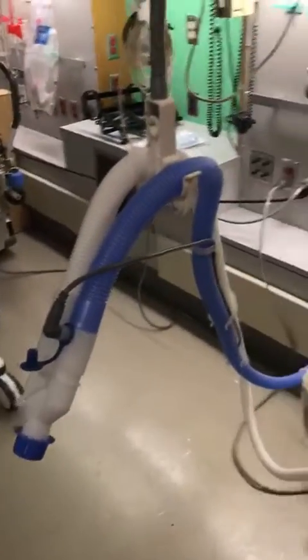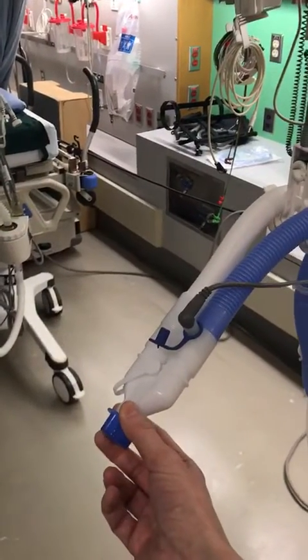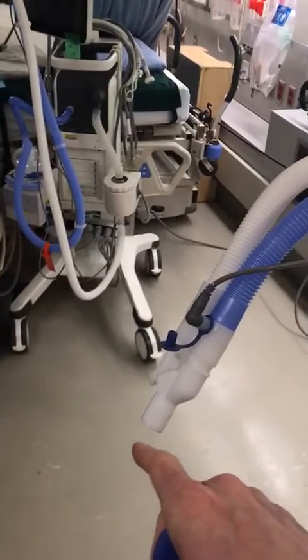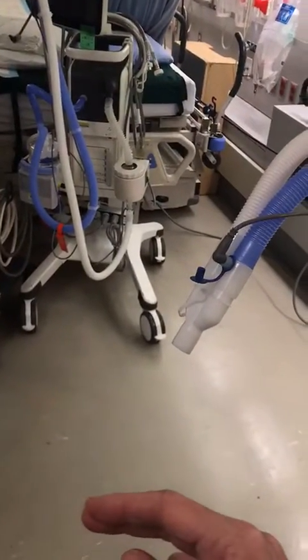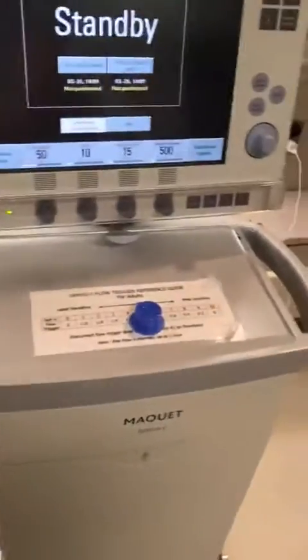Make sure with all of these ICU vents that have the active humidity that you're not going to have an HME filter. That's going to cause a lot of resistance. Your ventilator is going to end up high pressuring. So you're going to disconnect, just have your suction, which should be pre-set up, your inline suction, and it'll go directly on the patient. At that point you need to clamp the endotracheal tube because there will be a time where there's no filter or anything connected.